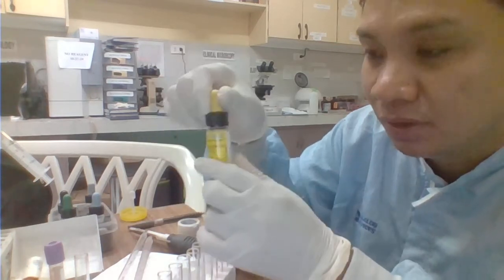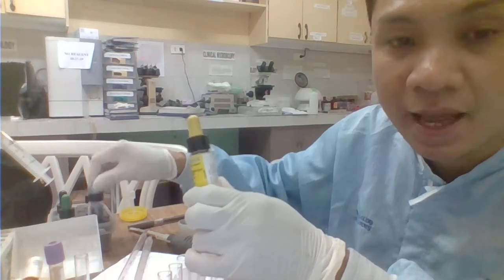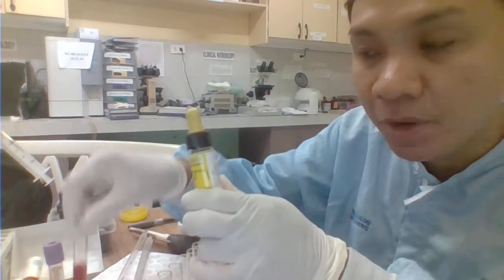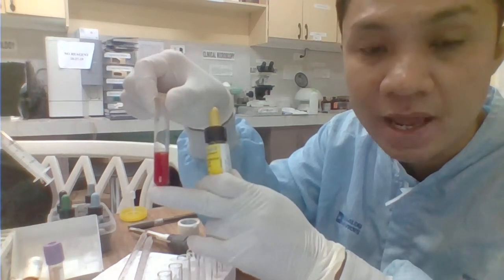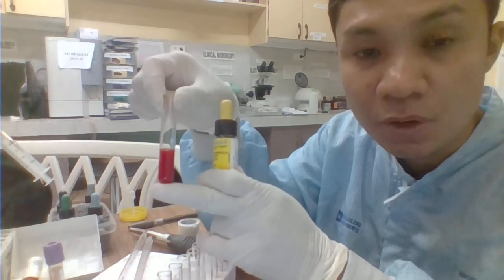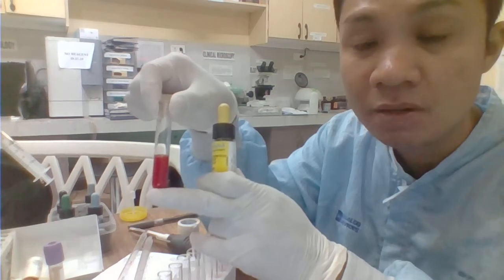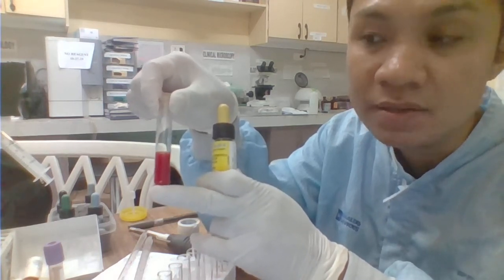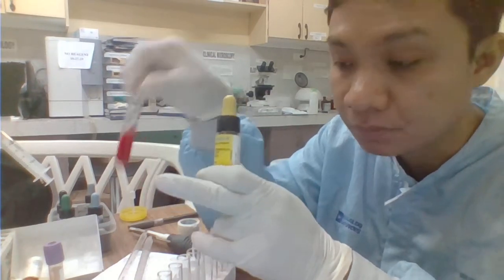Okay, so in our procedure, the actual experiment, dapat lahat ng titer ng ating Antisera, you'll be determining. But the available here na red cell suspension natin, the red cell suspension is being done just like when we are doing your preparation of your red cell suspension. So, collect the blood, and then magwa-wash tayo 3 times, then compute for the volume ng wash PRBC, volume ng NSS, then you should have this cherry red na red cell suspension.